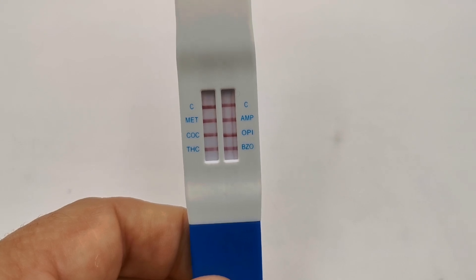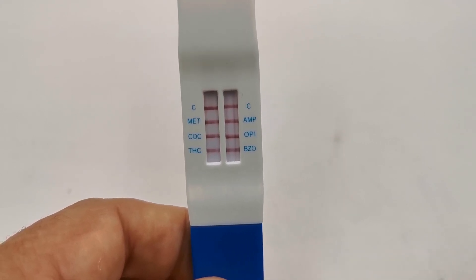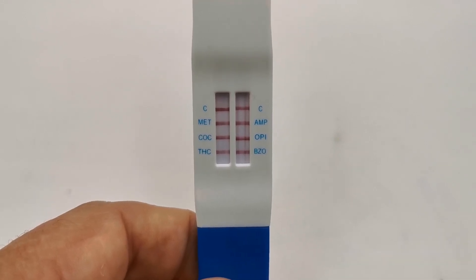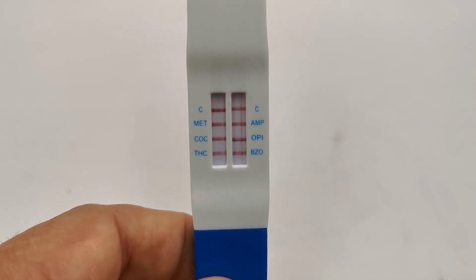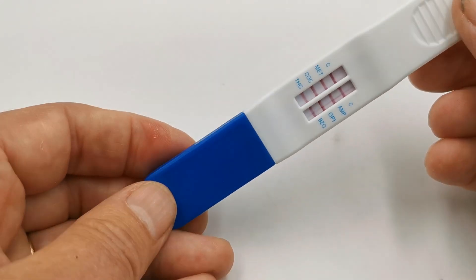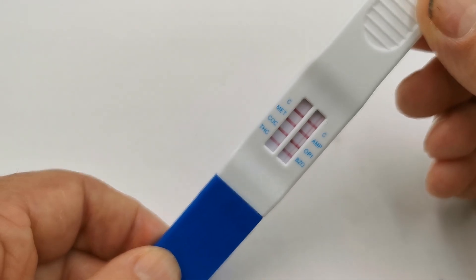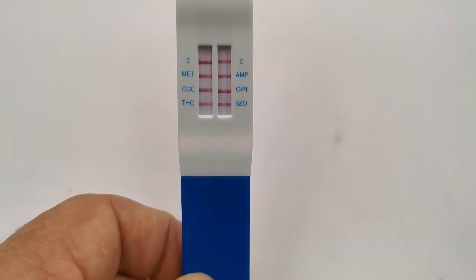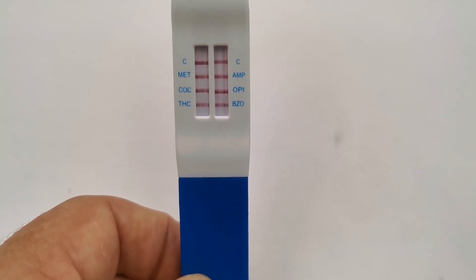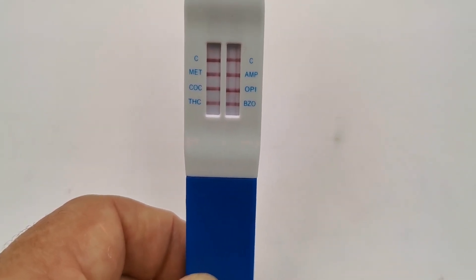If you have control lines and test lines showing against only two or one of the drug groups, with no test line against the others in a column, then those drugs have been detected at the manufacturer's cutoff sensitivity and you should confirm those results using an accredited laboratory method. That's the UK Drug Testing six-in-one direct saliva test demonstrated — a well-designed, accurate, reliable, and fast saliva drug test screening for six common drug groups, useful in business and industry, and available from the UK Drug Testing and Drug Testing Kits websites.